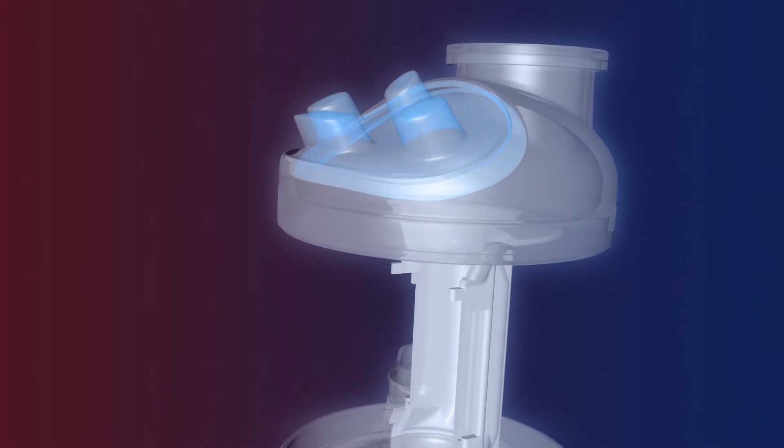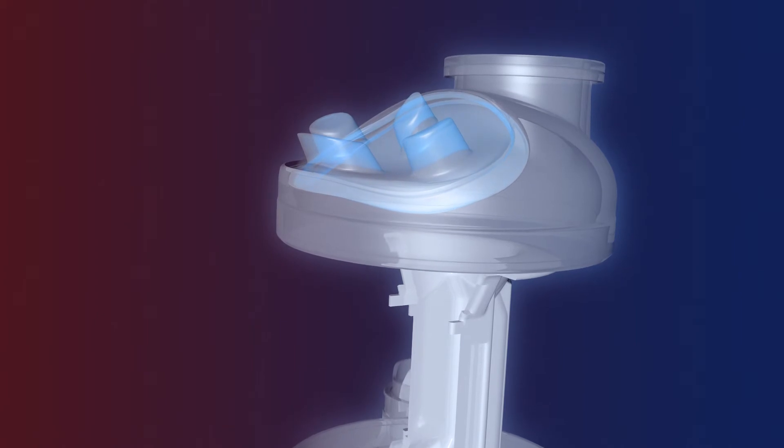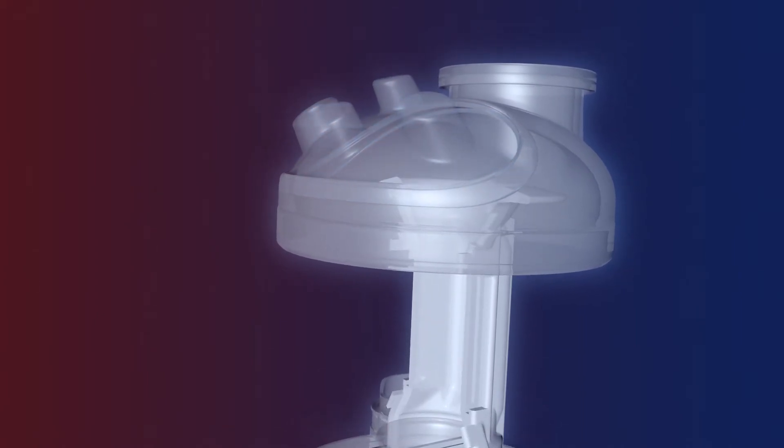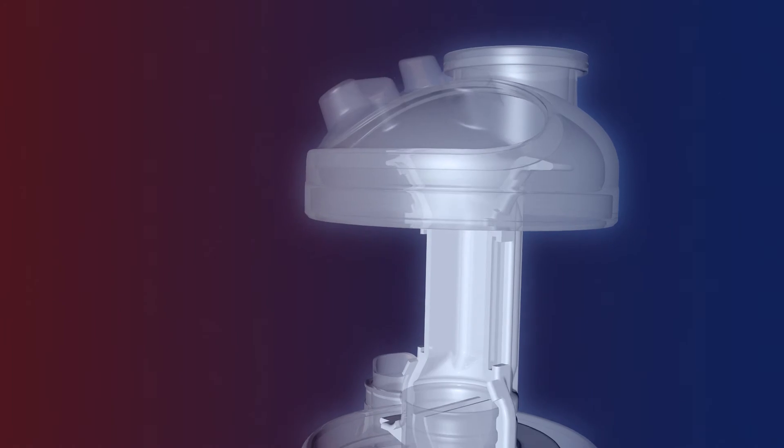It will be pulled towards the atrium when the valve cylinder moves downwards towards the ventricle, and returned to its position when more blood pours into the atrium.